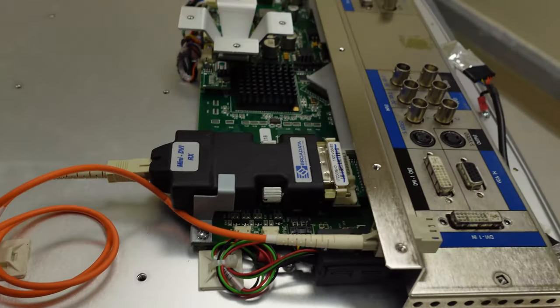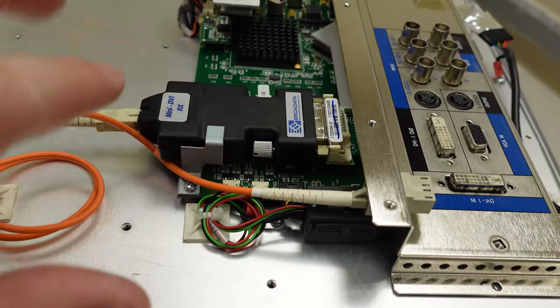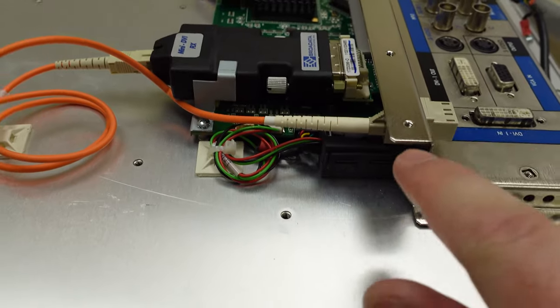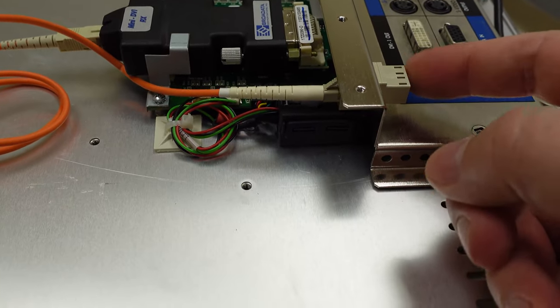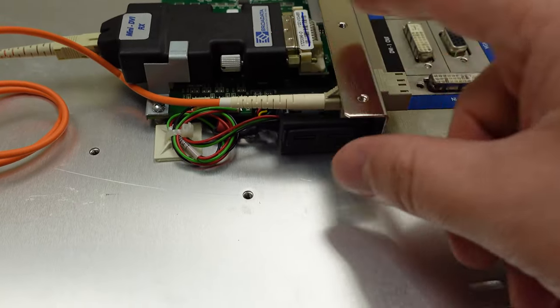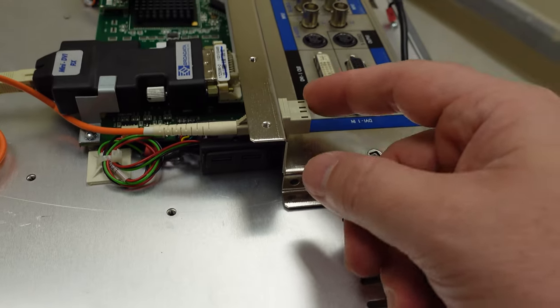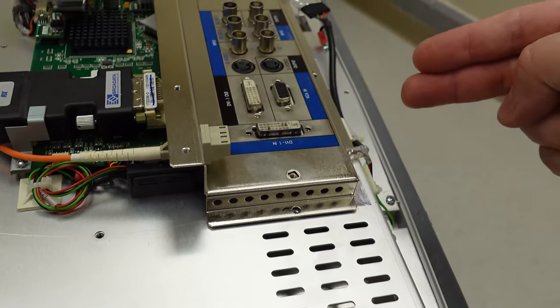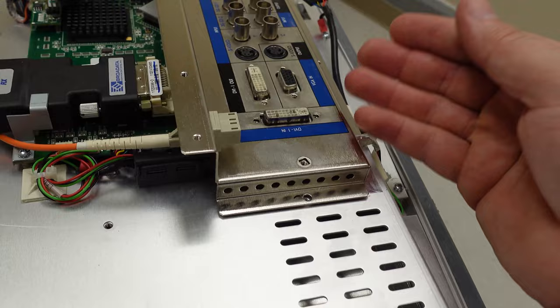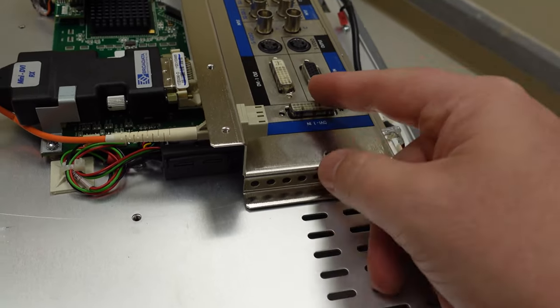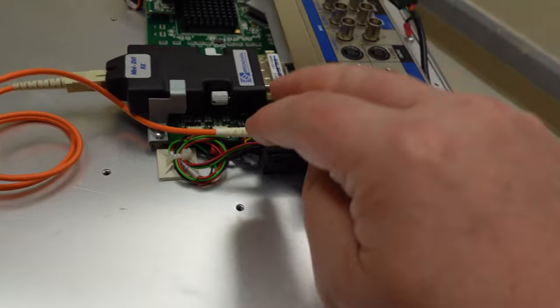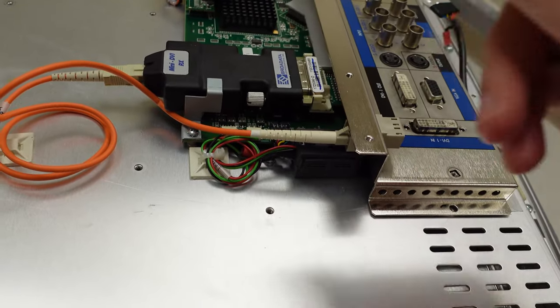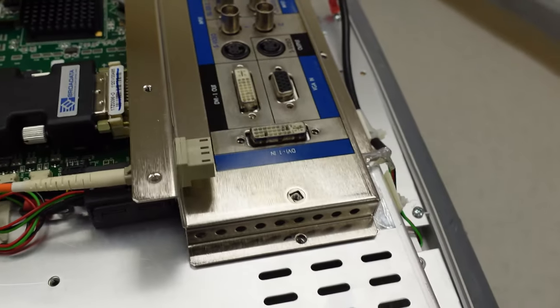If you have a monitor you want to get back up and going, one option is to find a TX. This here is an RX, a receive. You need a TX and you can have a fiber connect from here to your TX someplace in your video tower. Then you just connect your DVI to your TX, it goes into fiber, comes into here, gets converted back to DVI. That is your one option.